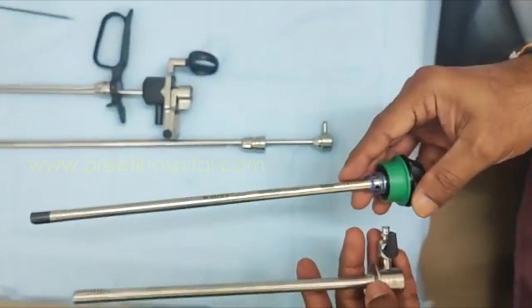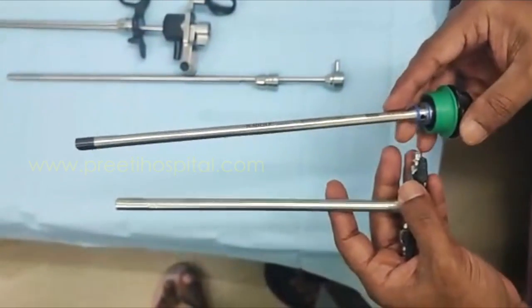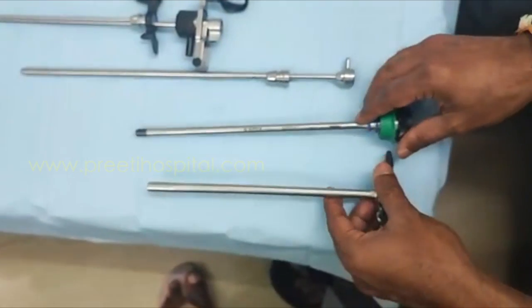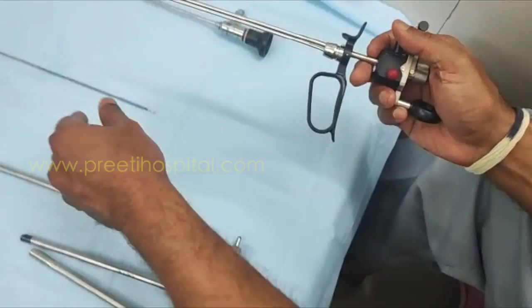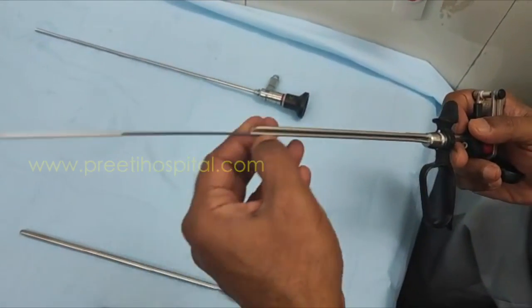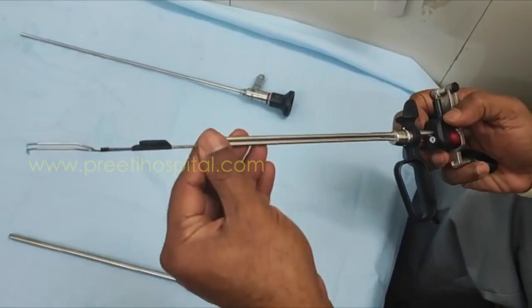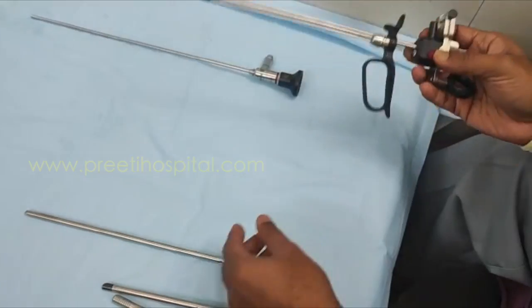RK Medical, which is shown in the video, is 22 by 18 French. So this working element is very small, and you have two separate channels. The separate channel has an advantage — it is very smooth, and if you press it, it will go in.